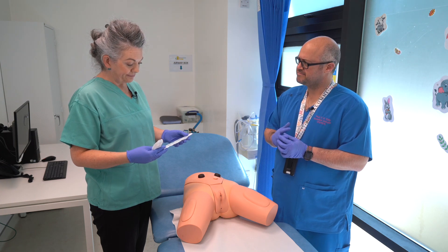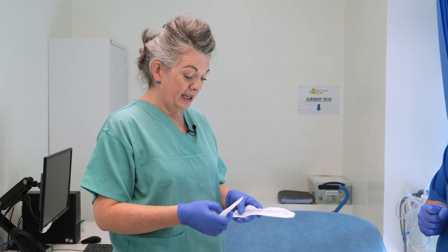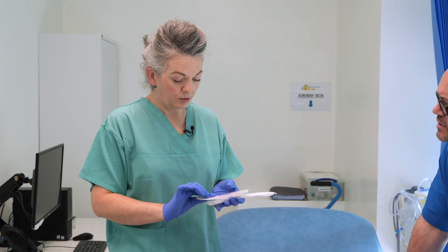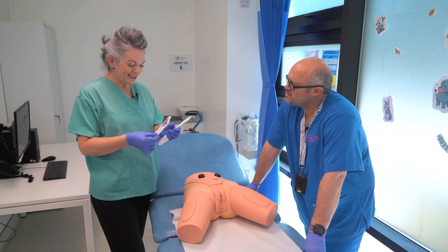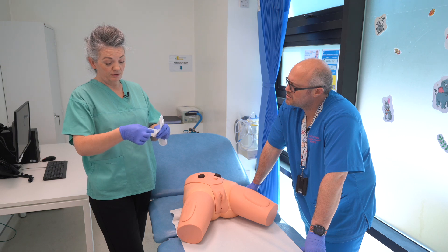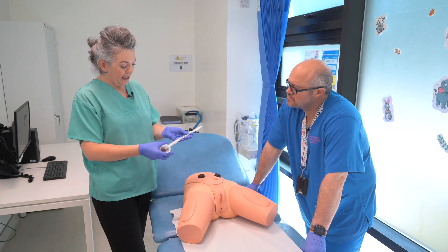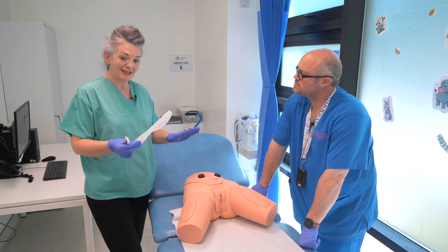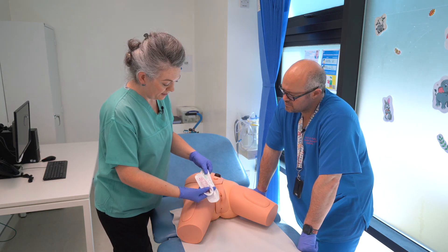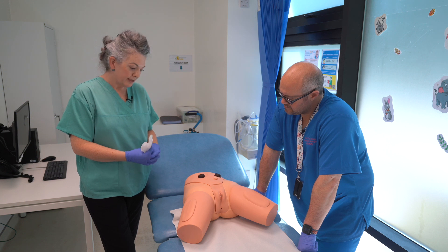With a female, their urethra or water pipe is relatively short, so the catheters we use are shorter — 20 centimeters, or the mini catheters which are nine centimeters, ideal if you can catheterize while sitting on the toilet, draining directly into the toilet with gravity. The 20 centimeter is used for anyone who needs to catheterize while lying flat, as a very short catheter won't suffice — you need a little bit of siphonage to drain the bladder.